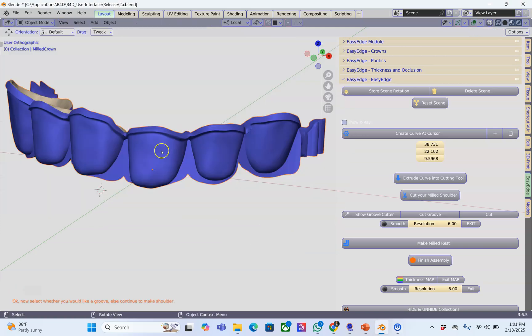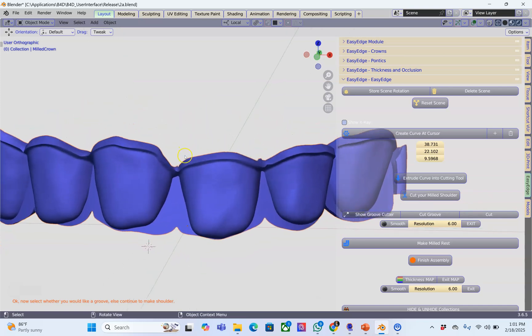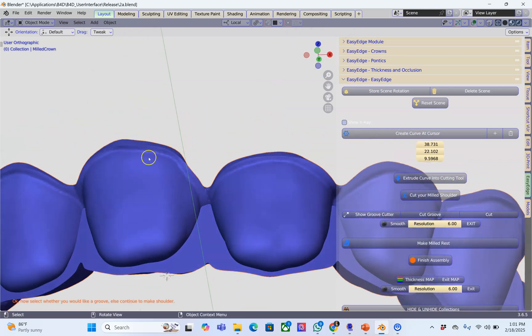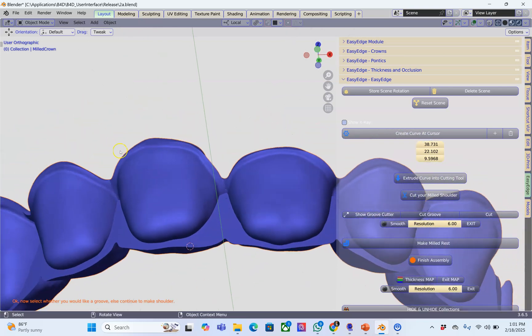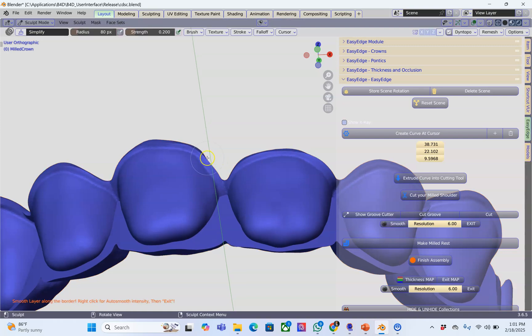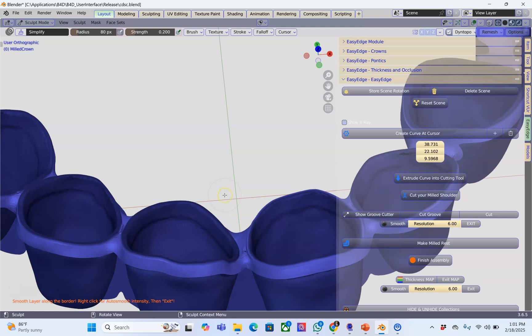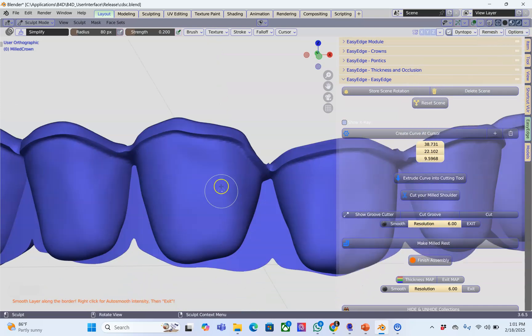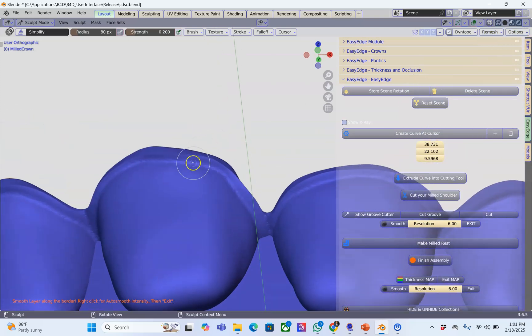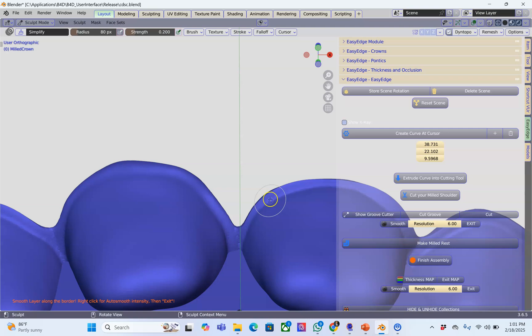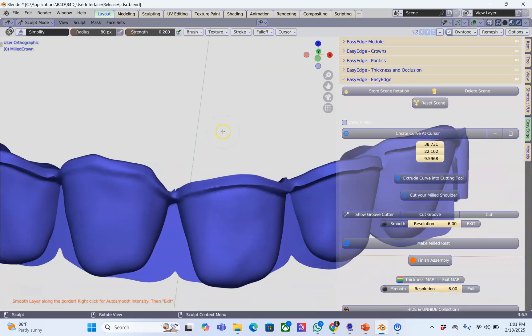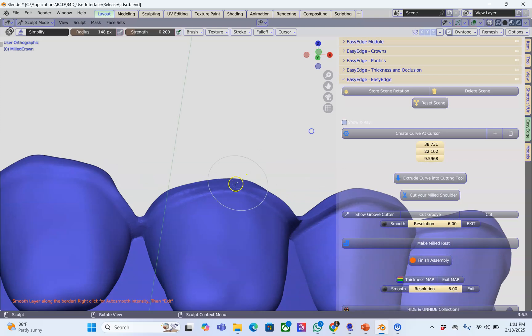If you wanted to smooth it you can still smooth that down. I'm just going to save the file. When I click on smooth we've got a protective area on the inside like that. That's simply so that you can't mess around with the inside of it. I'll just smooth it down a little bit to get it closer to the margin, to get a more aesthetic edge.